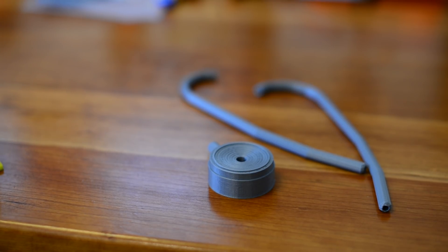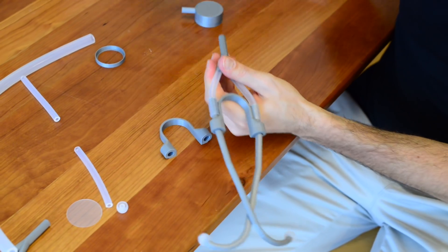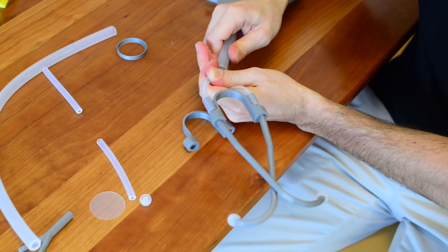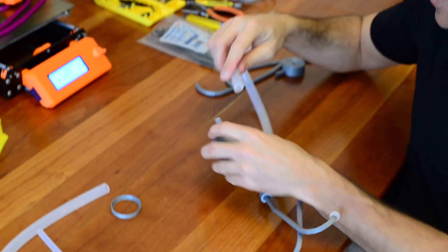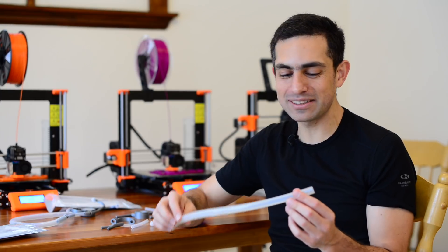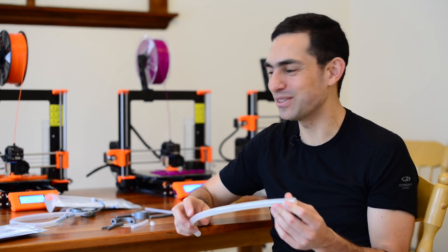The other part is tubes. We picked these tubes because they are available in Coca-Cola machines. And we figured there's Coca-Cola everywhere, so there will be this tube everywhere. And indeed, we have yet to run into a place that doesn't have this tube.